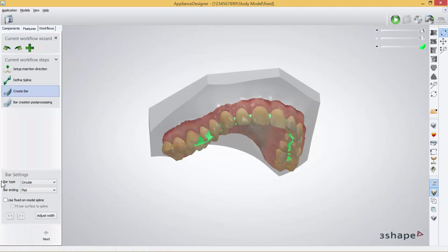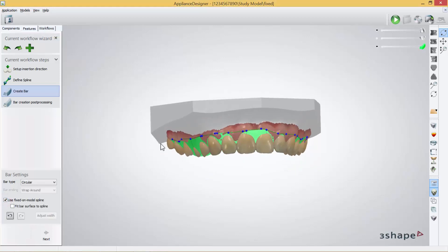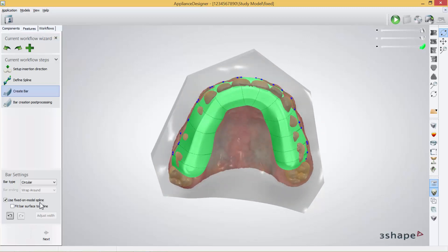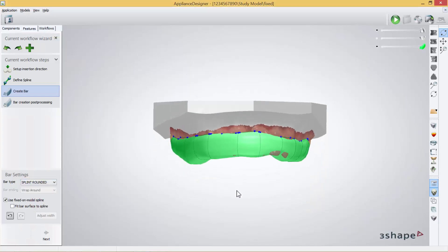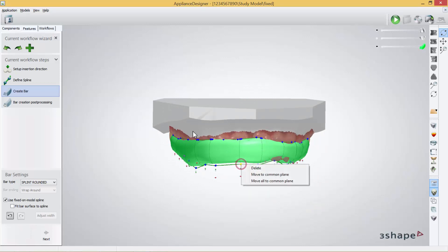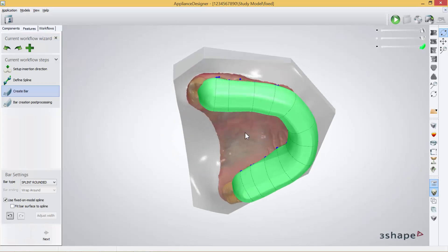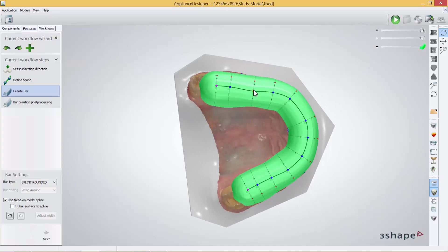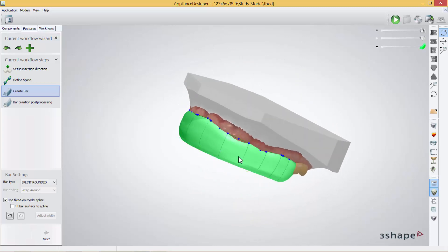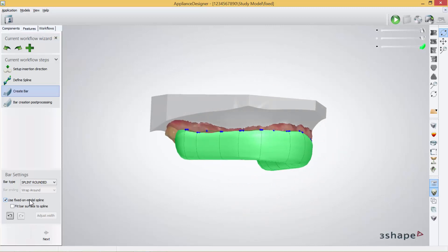In this part again I can choose the different bar types. To be able to see your fixed spline line you have to tick here and this will appear. To move the bar down I will press Shift and I can move them a bit down. To make a different kind of bar type I will press here to get another bar type. If I right click on one of the blue markers I can set them all to move to common plane to get a plane like this. Again you can move the different parts in here. And this is how you create a bar fixed on a model spline.